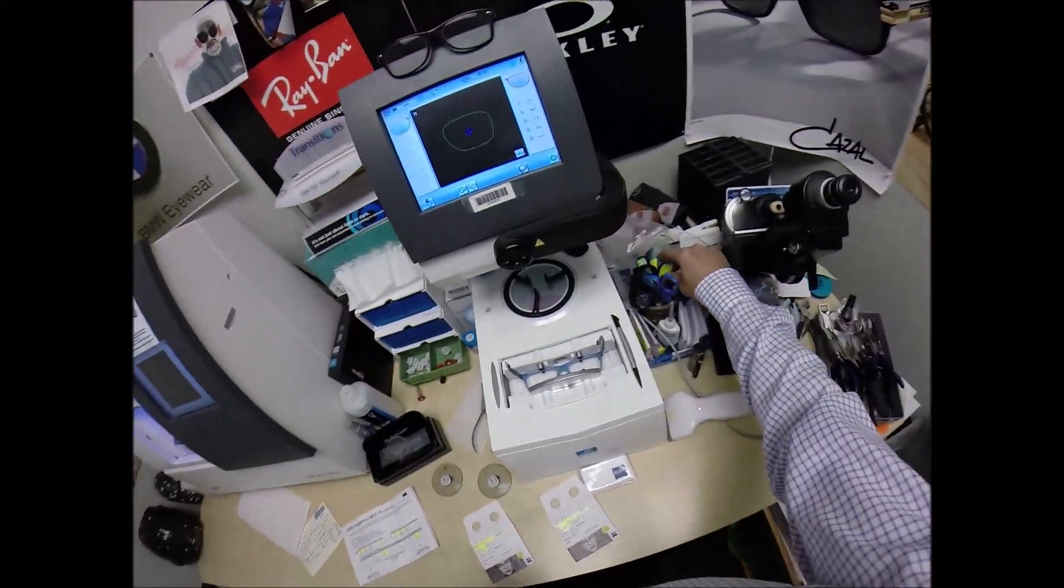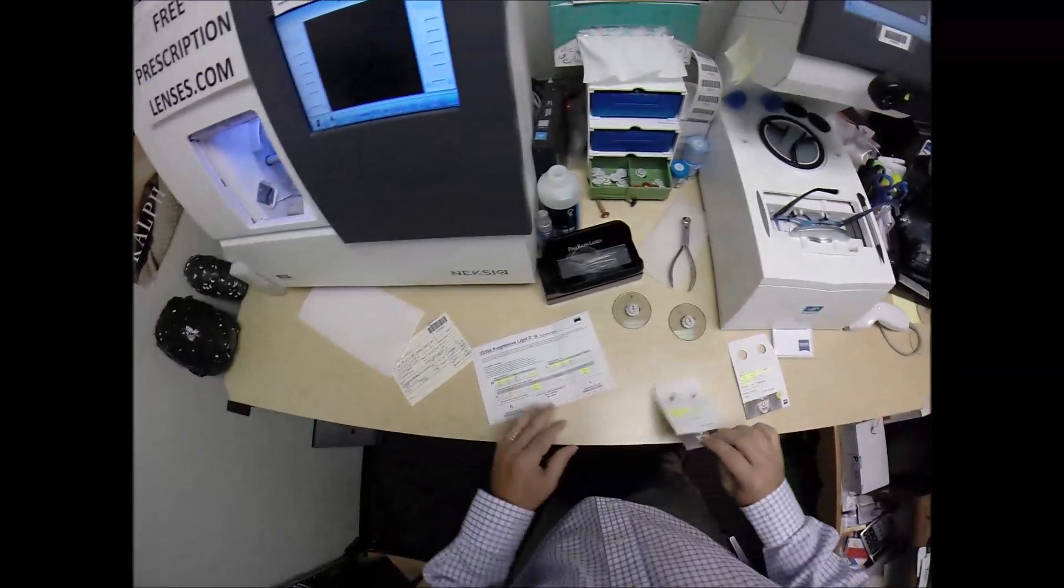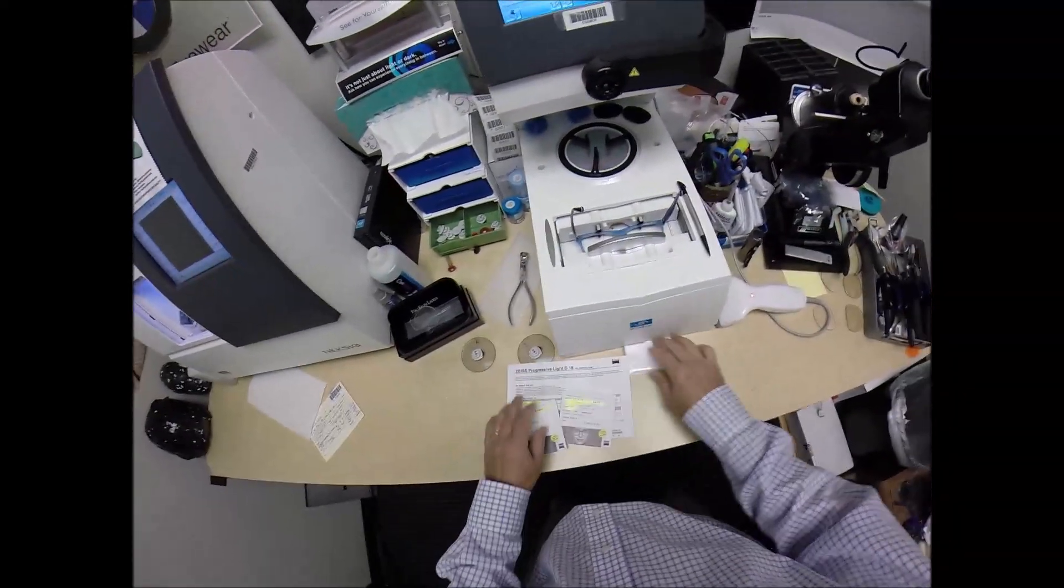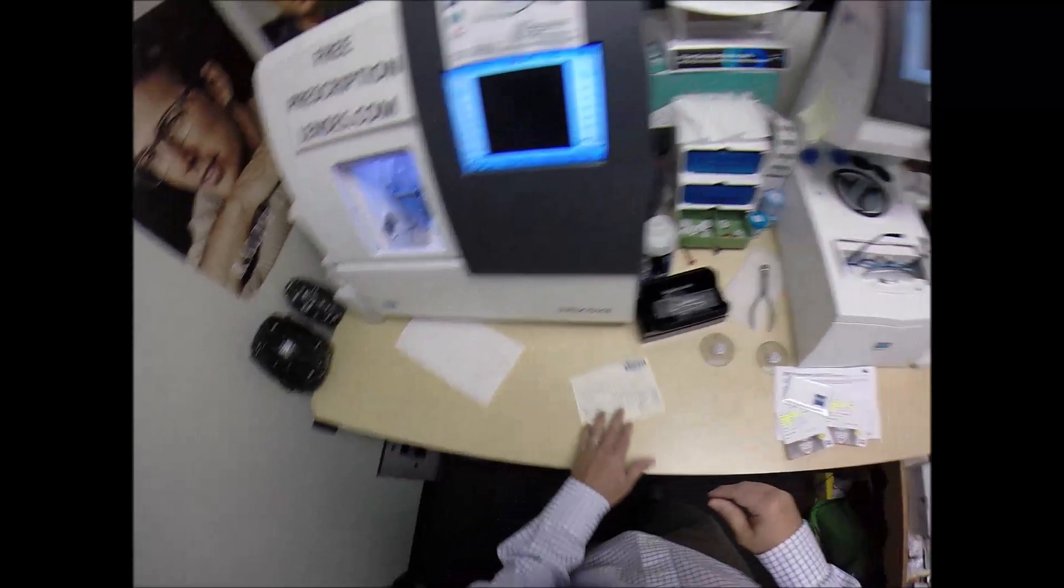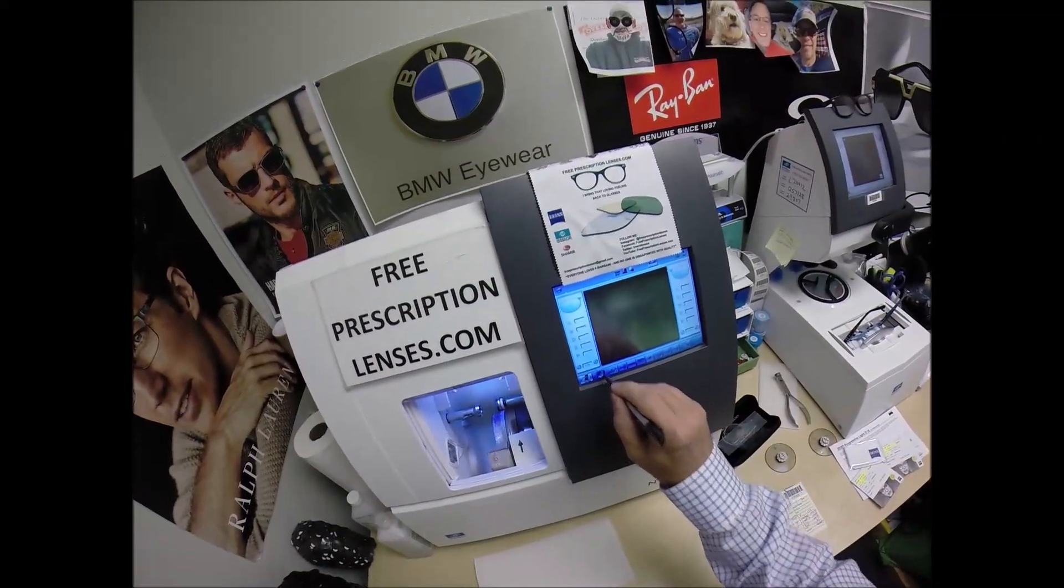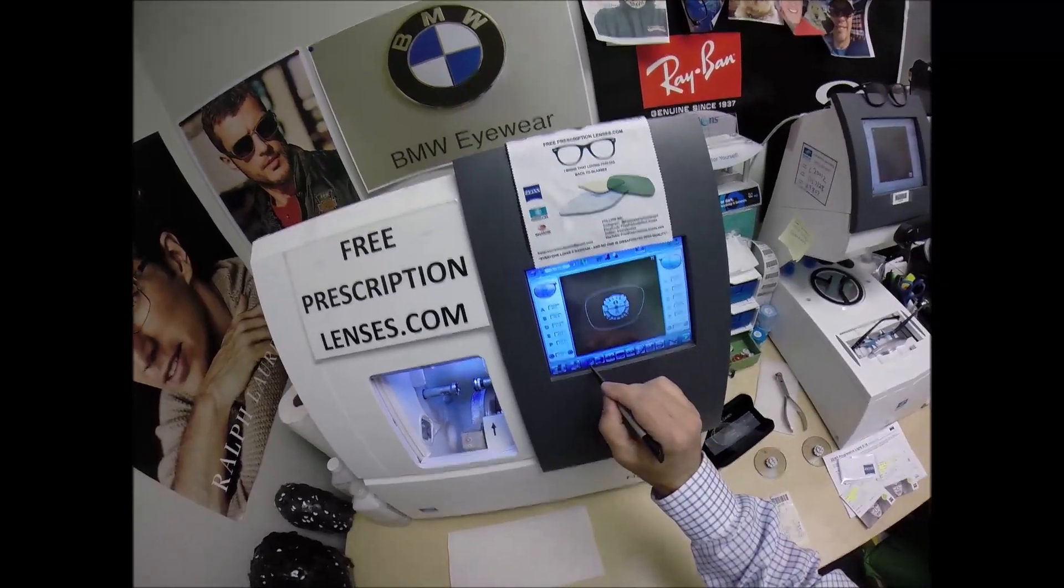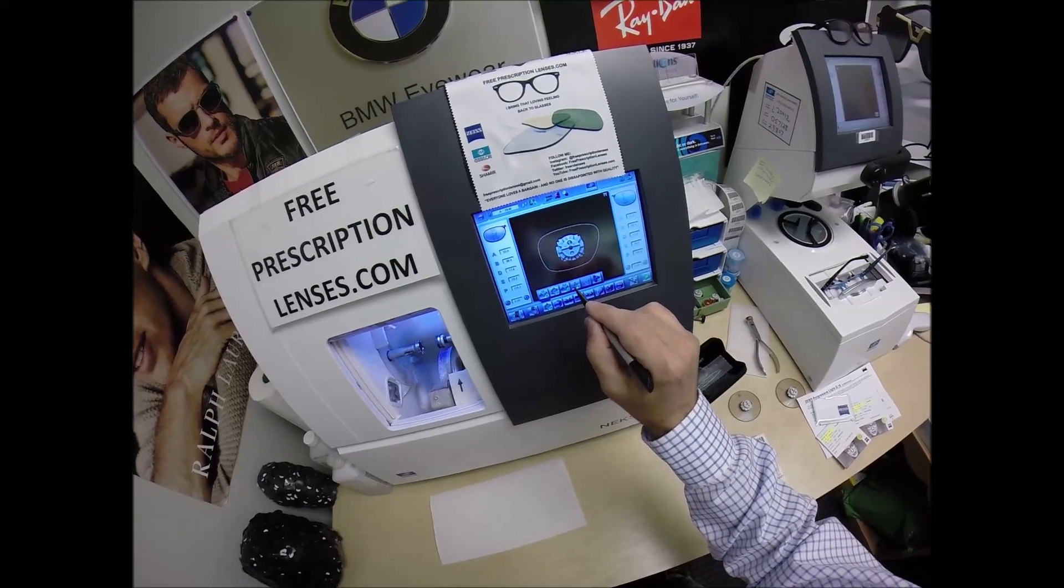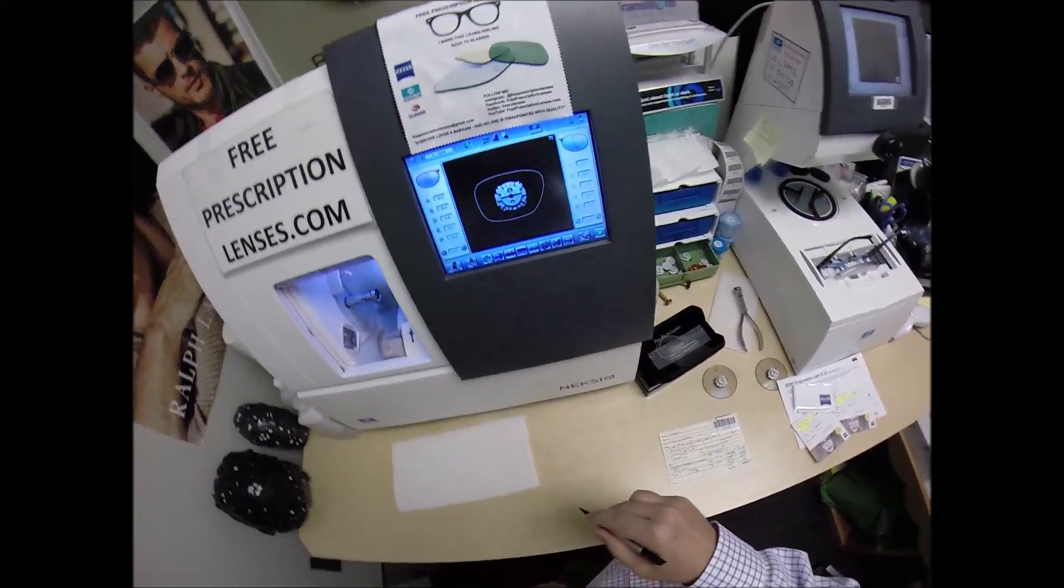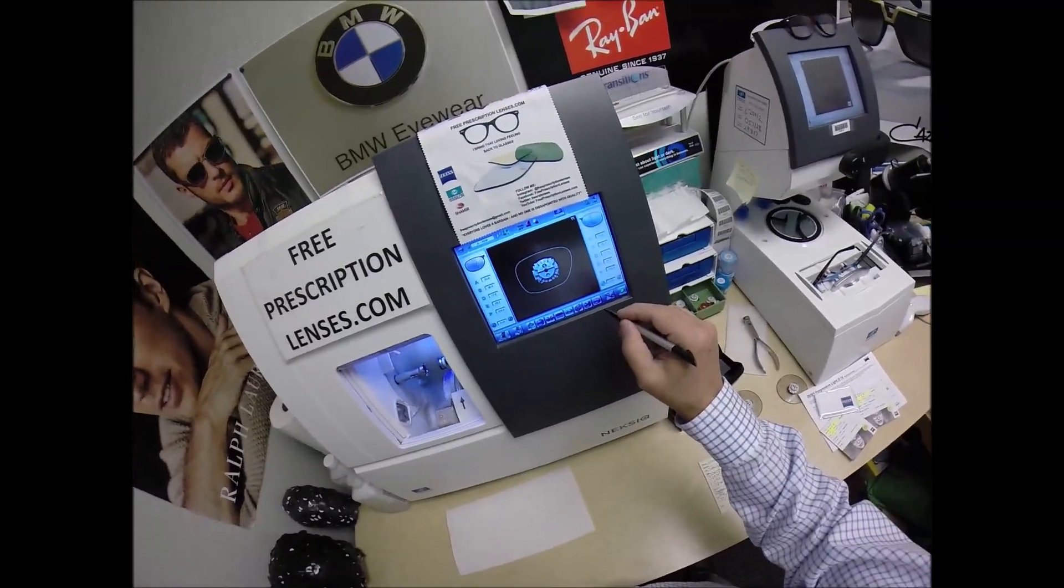If you guys missed any of that I put it away too quick, let me recap. There we go. So you're going to get all the manufacturers original packaging. Zeiss documents everything and even gives you a cleaning cloth. Let's move everything over to this screen. This will be job ID number 2648. These are polycarbonate lenses. If they were plastic, high index plastic or Trivex I would select those materials. I'm not going to polish the edge of the lens.